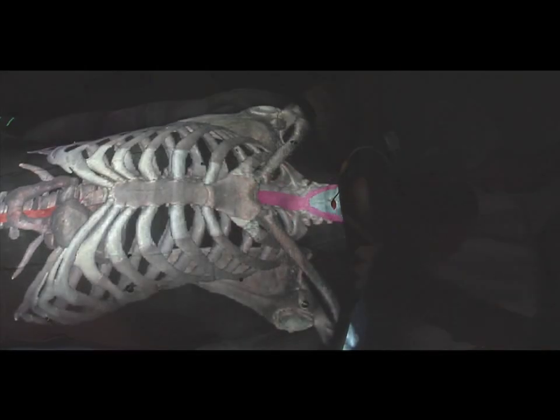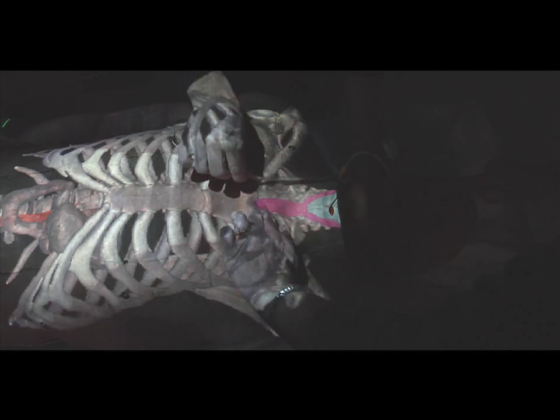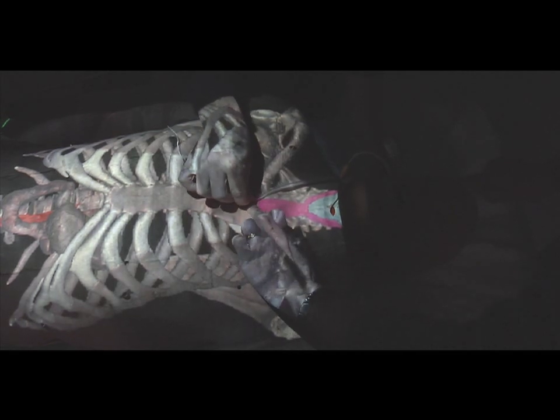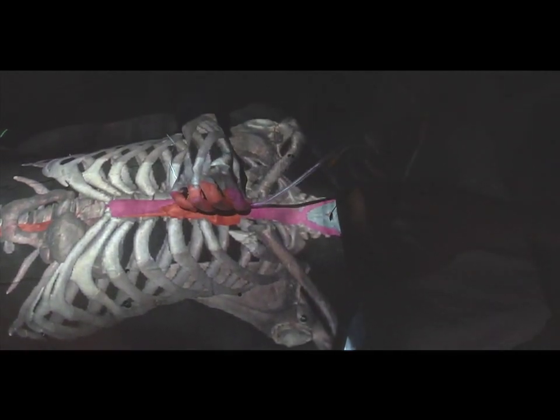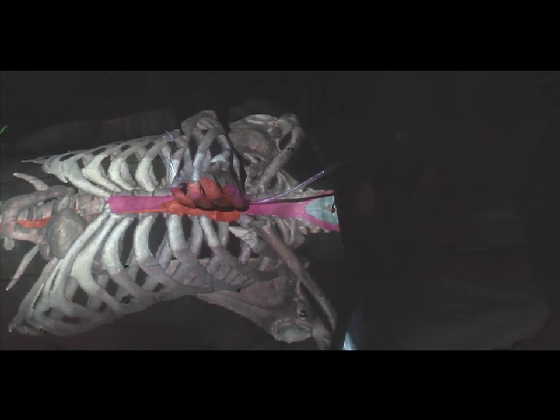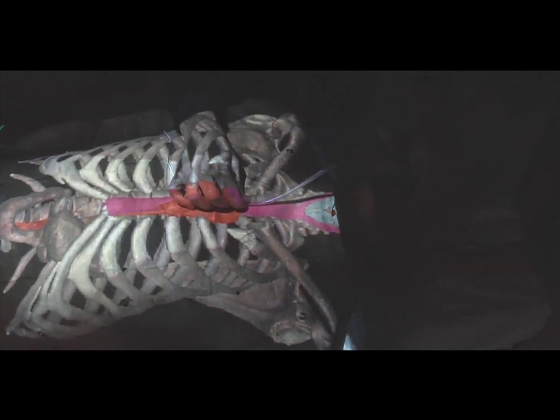The technique is being expanded to illustrate important anatomical locations during catheter or probe insertions. This method combines the mannequin and software simulations into a single, unique educational tool.